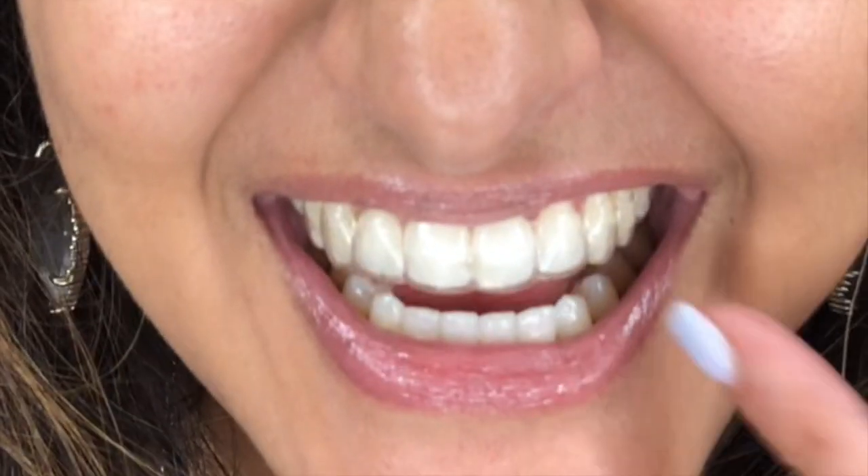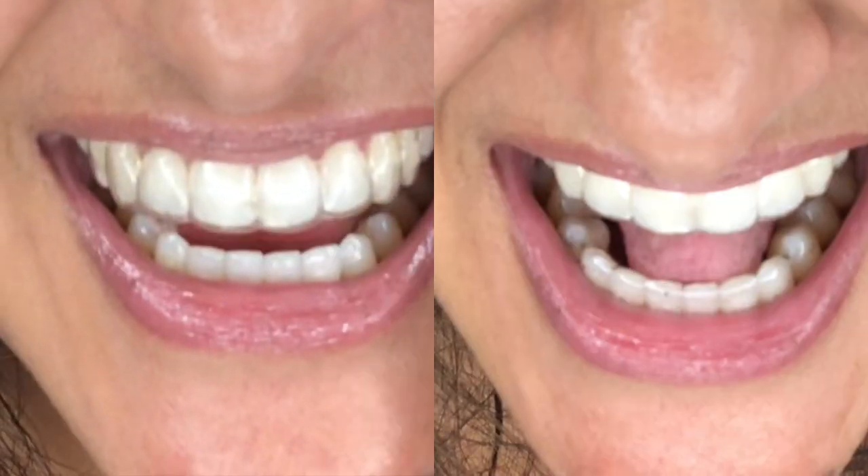For demonstration purposes, I've put on one of my old aligners. If you look really closely, you'll see there's space underneath the aligner where it's not seating all the way. So you want to do your upper arch for 10 to 15 seconds using the larger slot, then flip your Munchie over for the lower teeth using the slightly smaller slot, your canine teeth for another 10 to 15 seconds, and then the ridged area for your premolar teeth — the teeth right behind your canines.